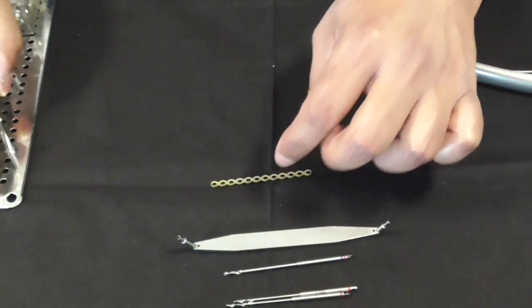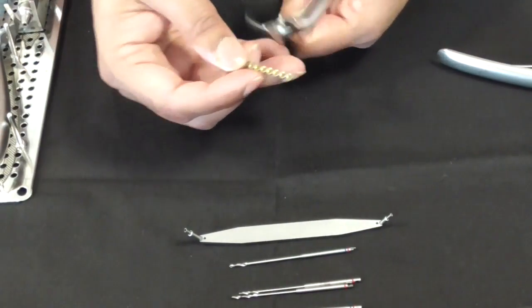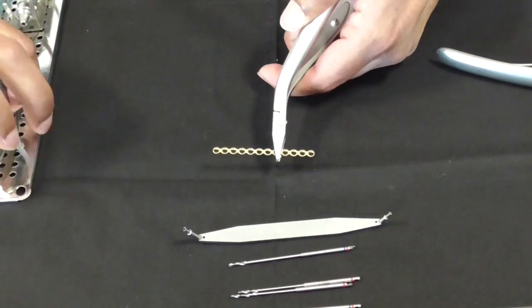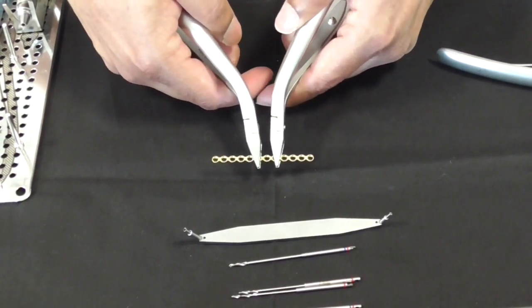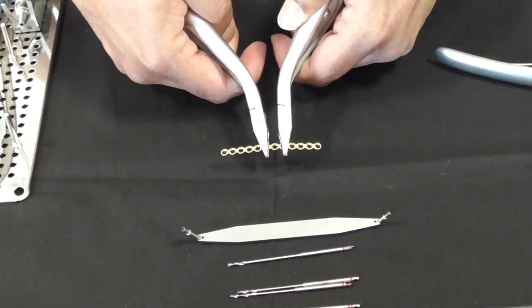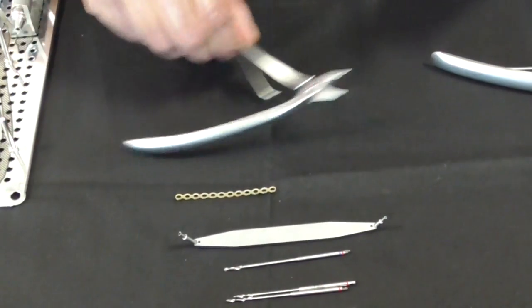When you get the plate, you want to contour it to the bone. This is very straight, so you want to then use a plate bender. It's two things, essentially two flat pliers, and you bend it to whatever shape to contour it. These are called plate benders, very important to contour the bone.